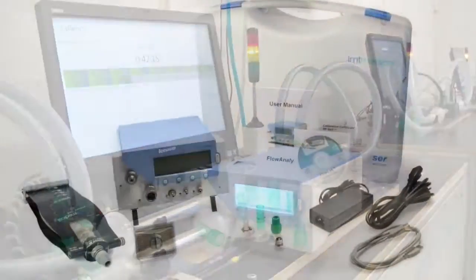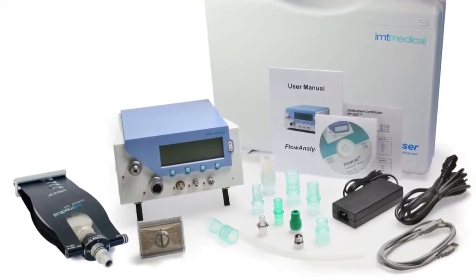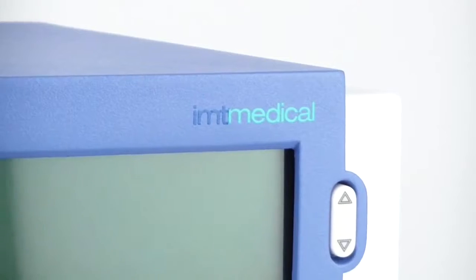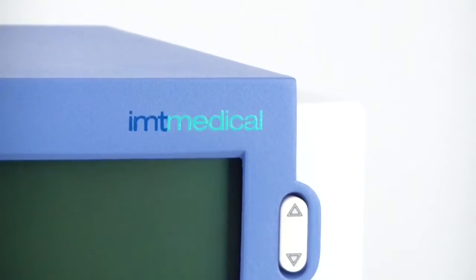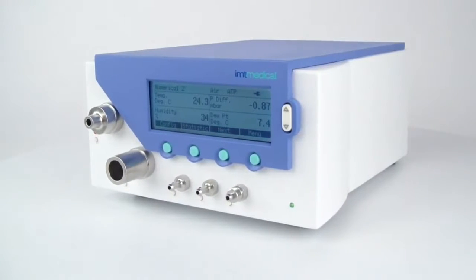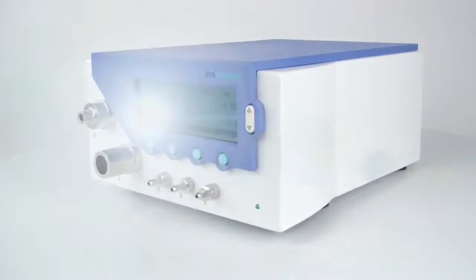Flow analyzer: the most powerful measurement and calibration tool for medical devices. Simple to operate, compact in its size, and reliable.